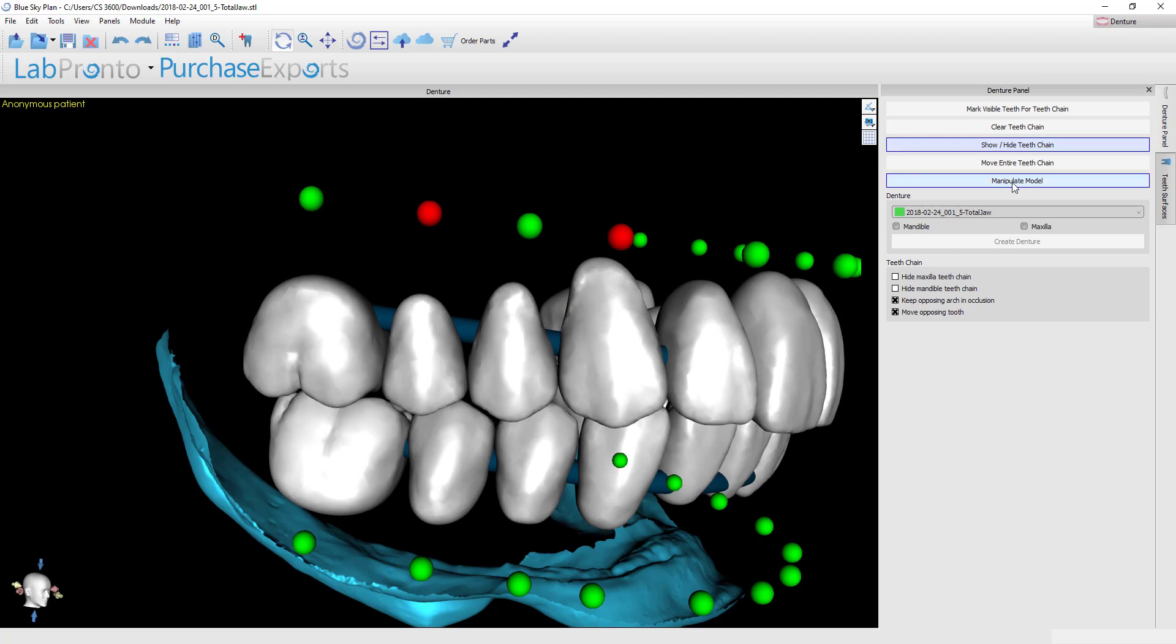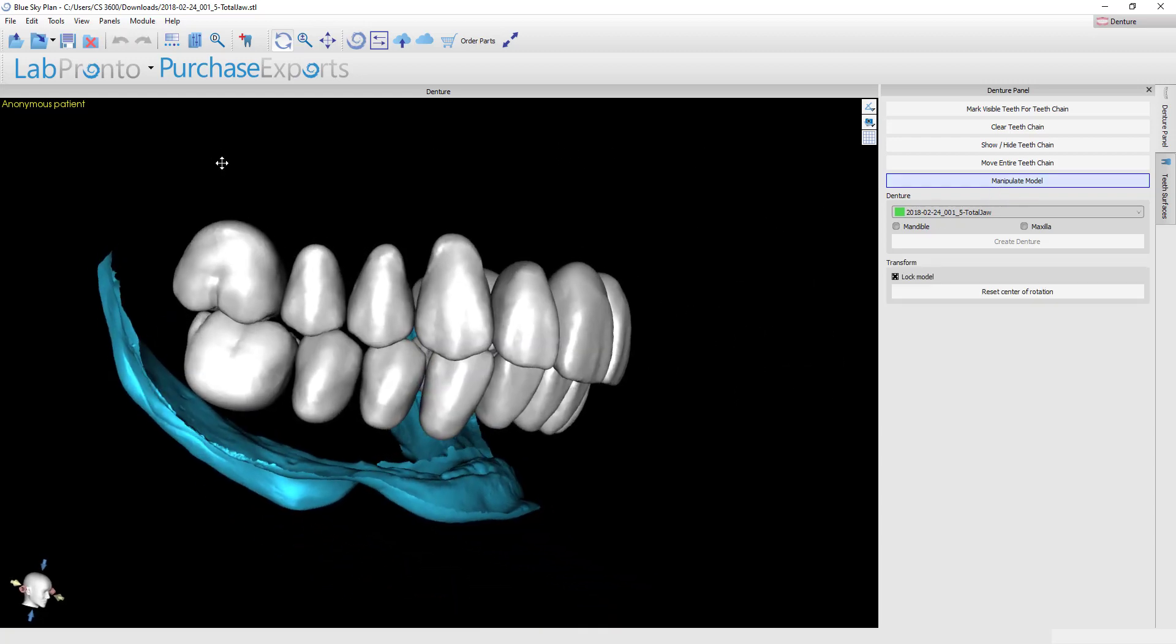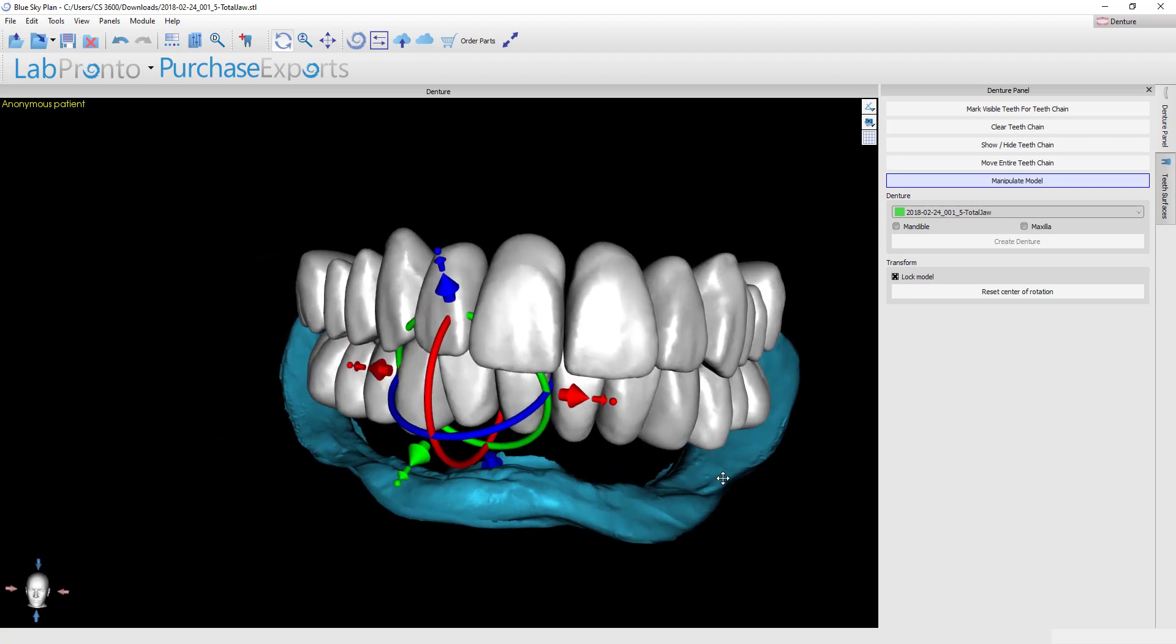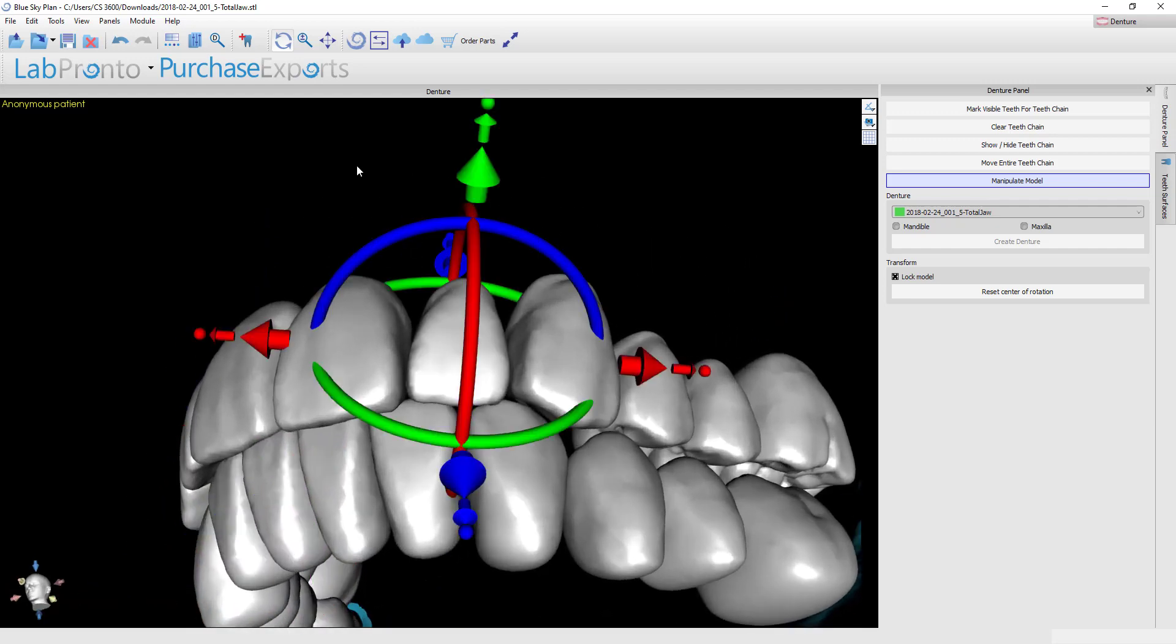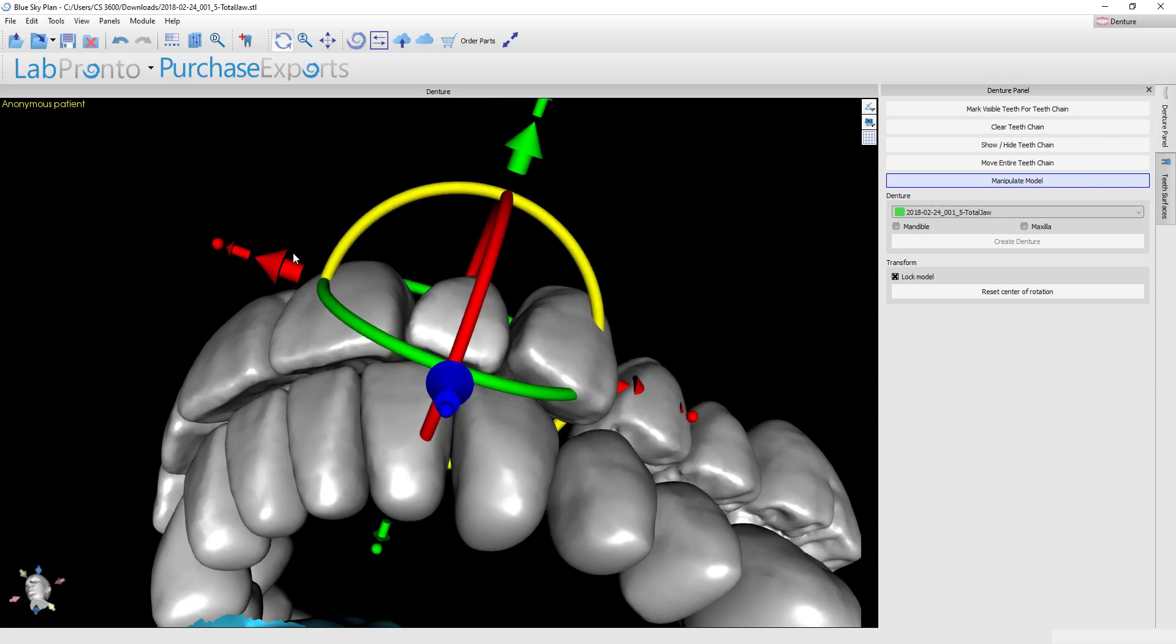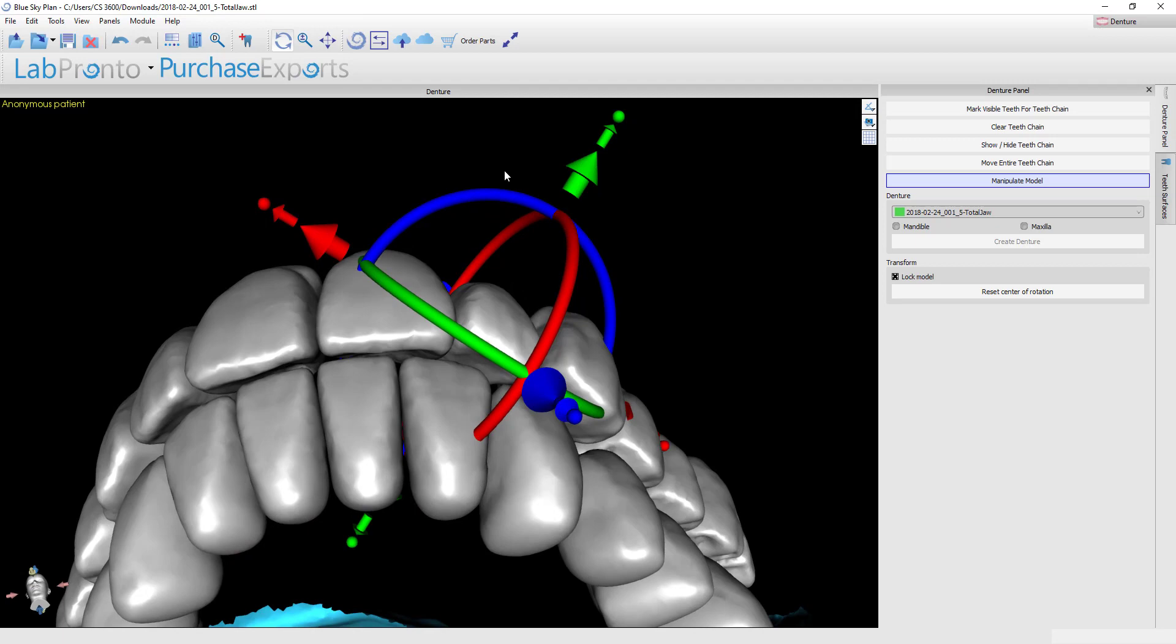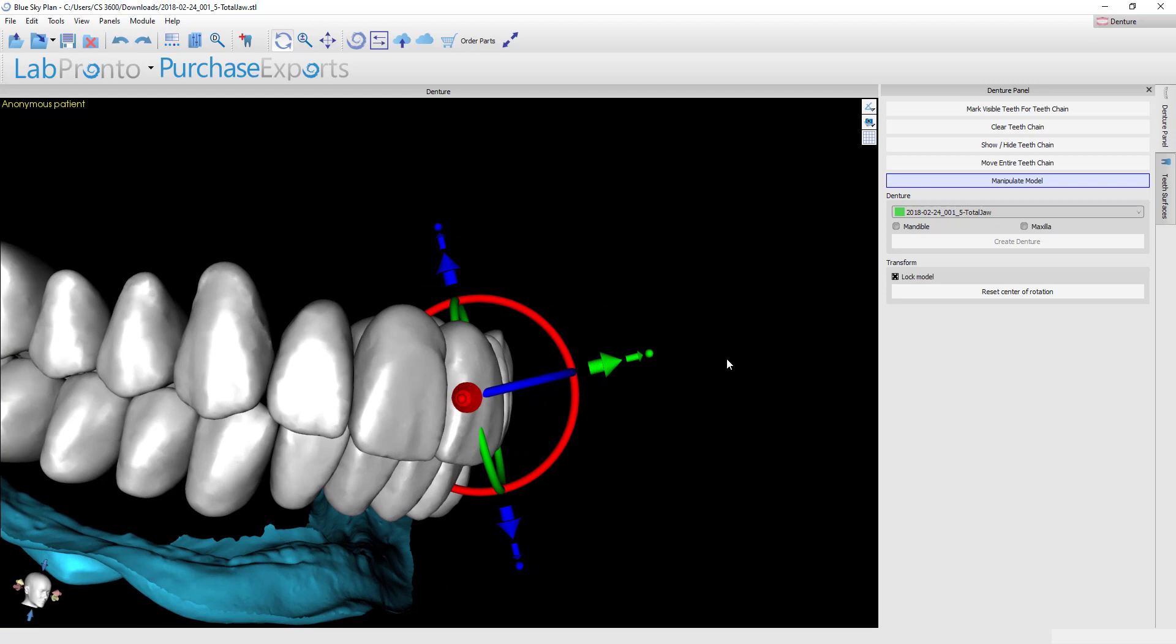And then finally if you want to make individual rotations to teeth you need to turn the tooth chain off and rather go to manipulate model. When I highlight the manipulate model button this allows me to hover over each individual tooth, or for that matter you could hover over your models and you can move all of these individually. Let's suppose that we wanted to add a little characterization to this lateral incisor. Maybe the patient brings in a picture of them when they were younger and they had a tooth that was slightly overlapping and twisted, then you could make that change. Again I don't really want to do that for this particular case but I just wanted to show you that that is possible.